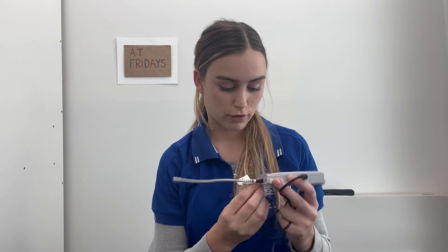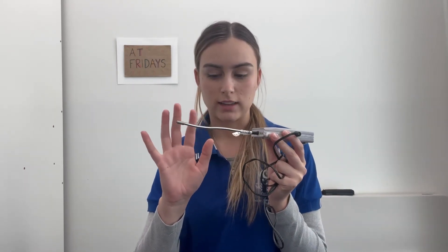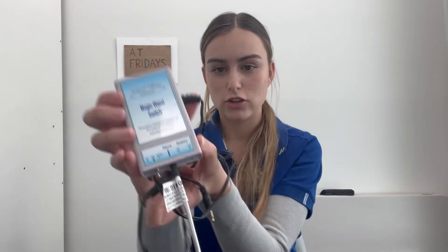So that may be a problem if somebody can only flex, for example, their shoulder where there might be clothing. If I turn the control box onto the beep setting, you can hear the beep. Whereas on clothing, it just doesn't work — so that may be a limitation. And that's the Magic Wand Switch.